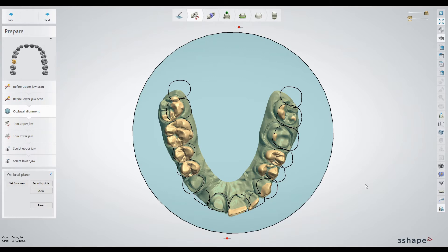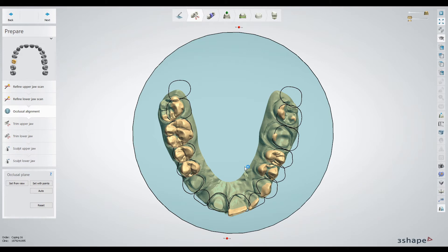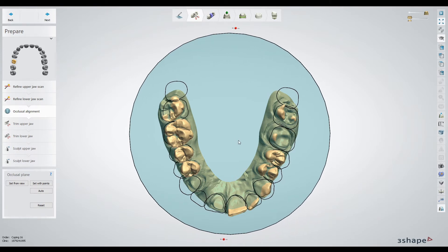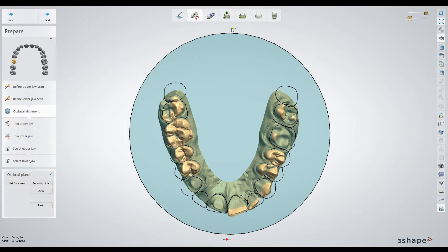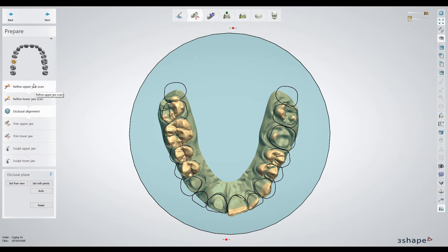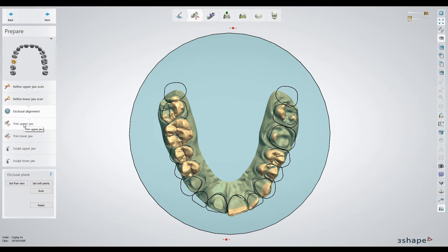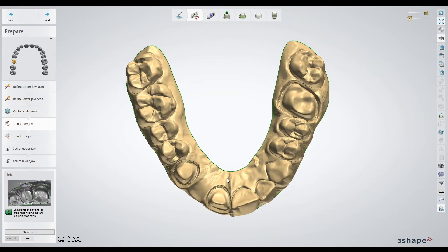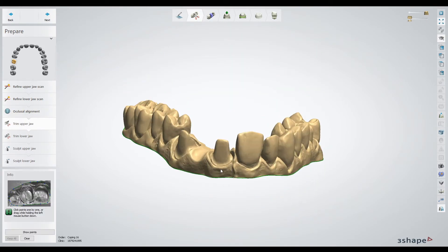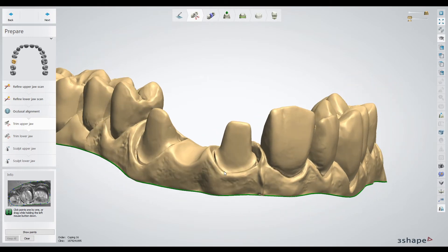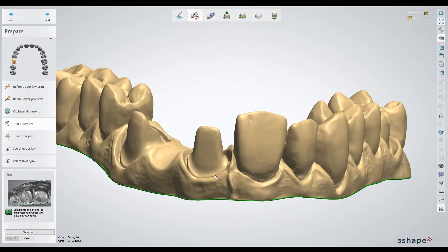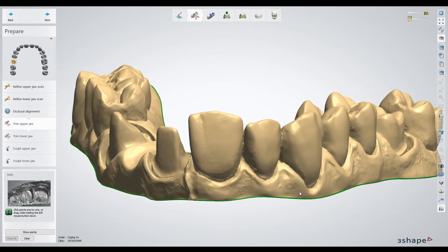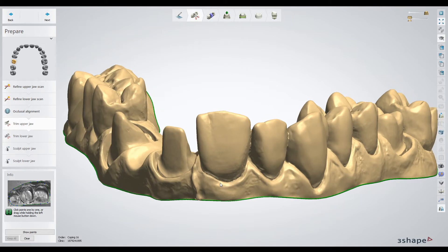Once your solid model order and restorations are set up, it opens the design software. The workflow starts with design. Once the restorations are designed, it then builds the model. The first step has a couple really important things. One is the occlusal alignment, making sure you're lining up your jaw and teeth to the appropriate location. Another couple important tools: refine upper scan allows you to fix holes or any other issues with the 3D intraoral scan, and trim jaw gives you the ability to edit the edge or perimeter of the mesh. This is important because the more you can trim off the model, the shorter the base will be, and that uses less material and will print quicker.